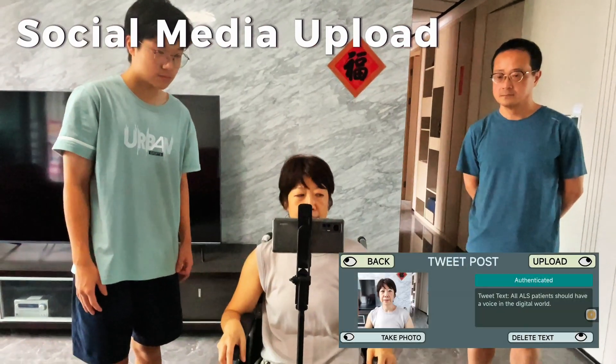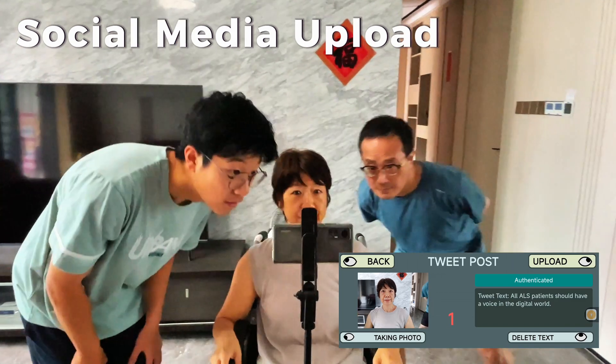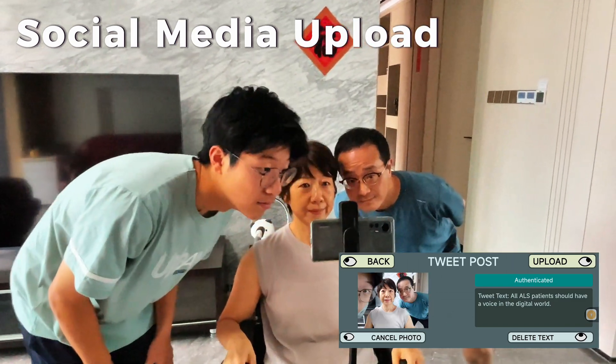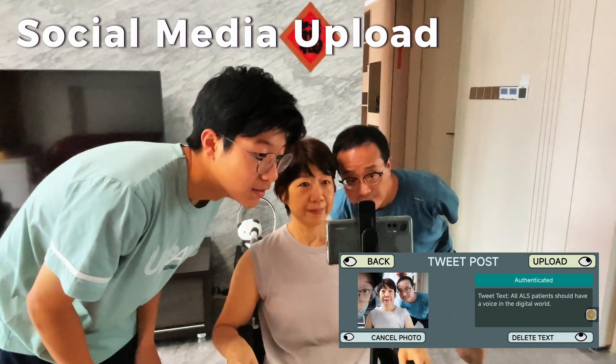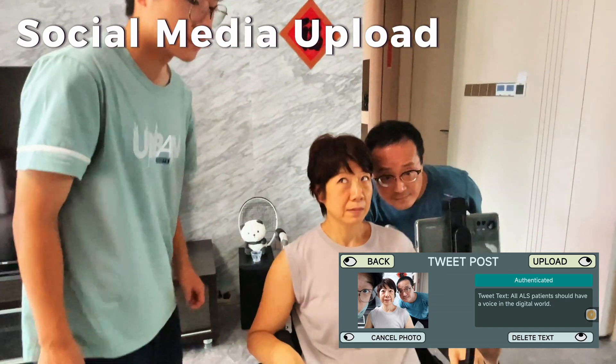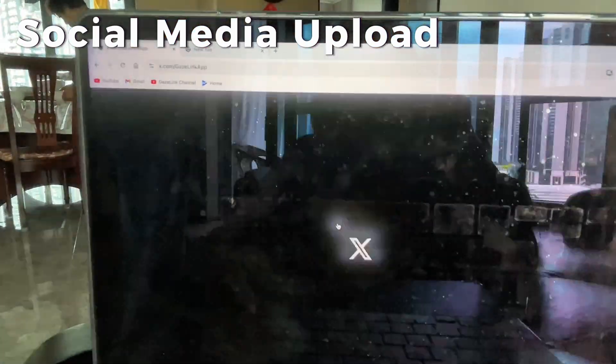Online representation is essential for the modern world. GazeLink includes a social media port, allowing users to upload text and photos to X with only their eyes.